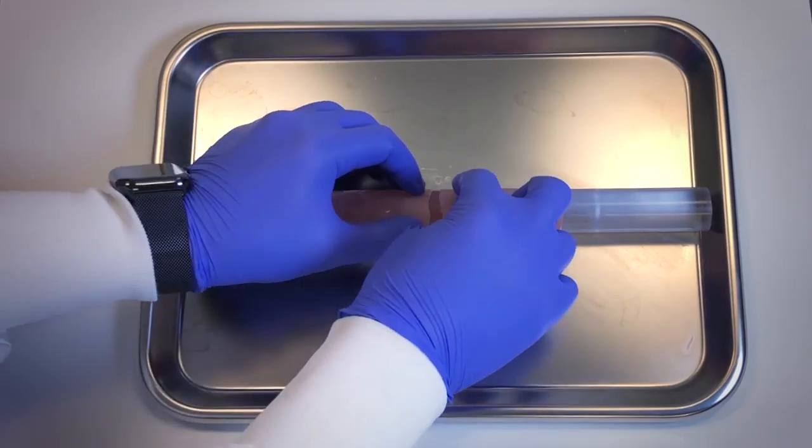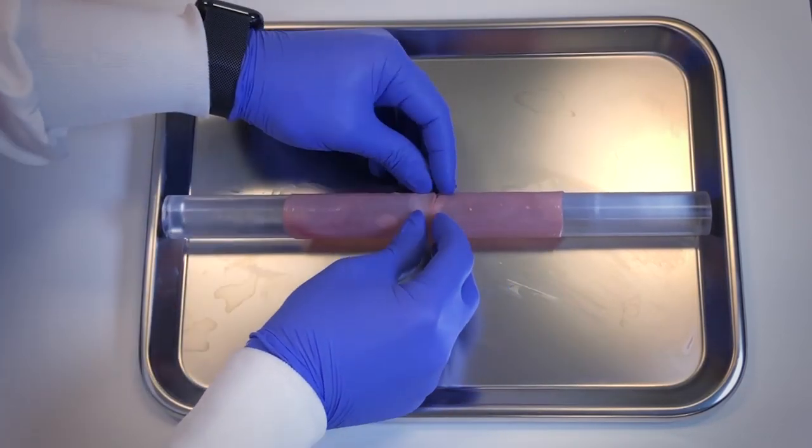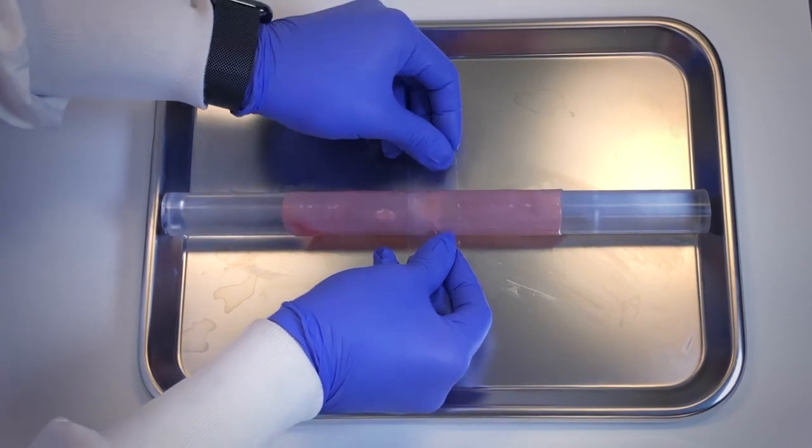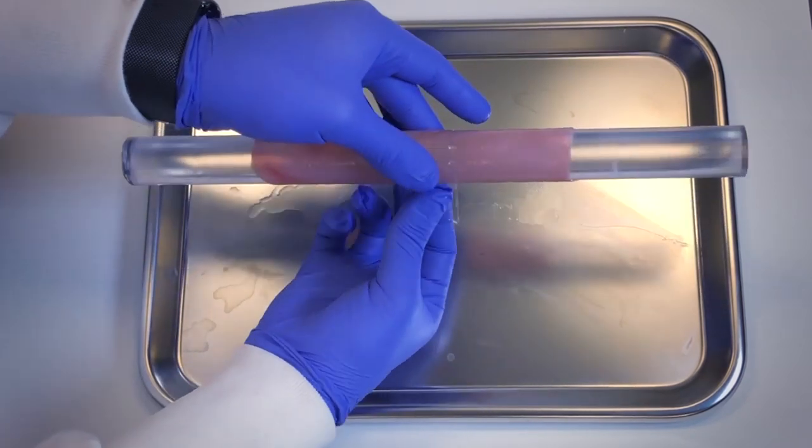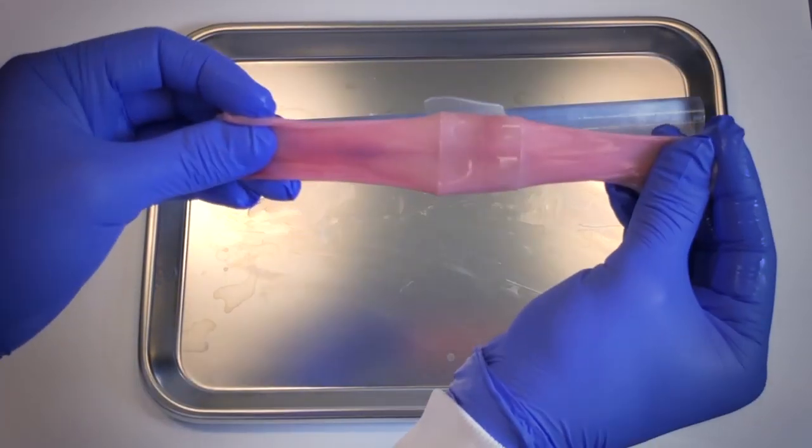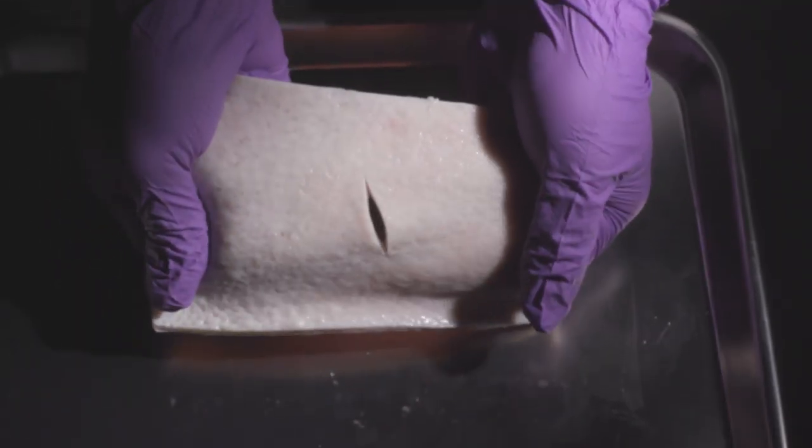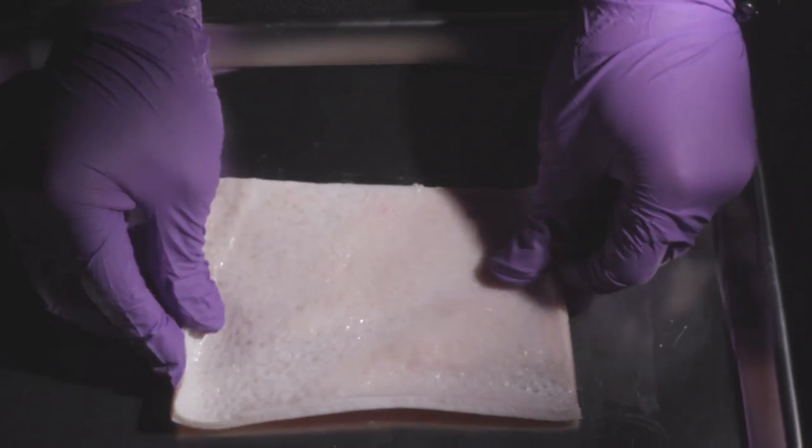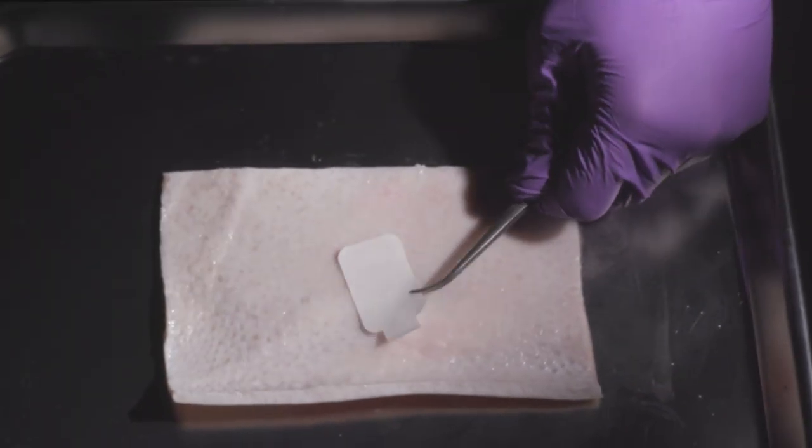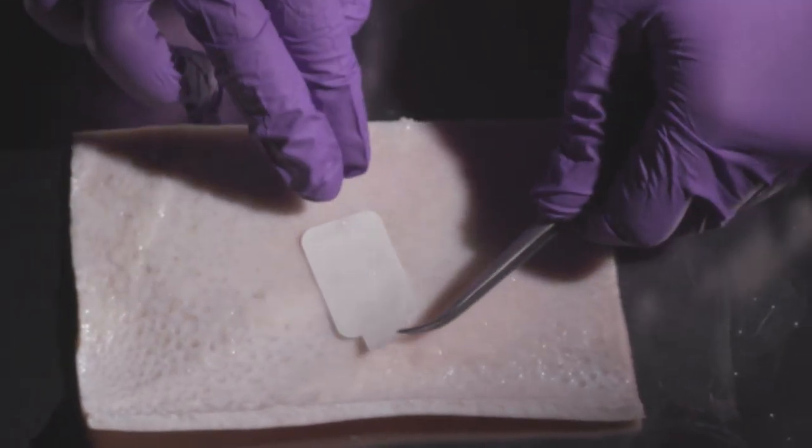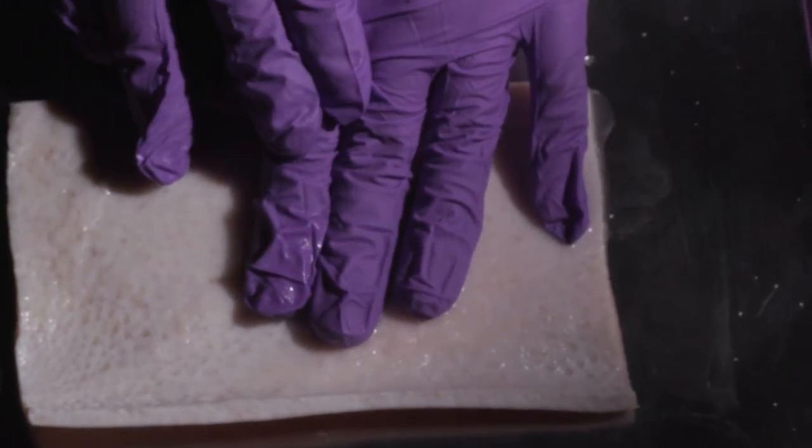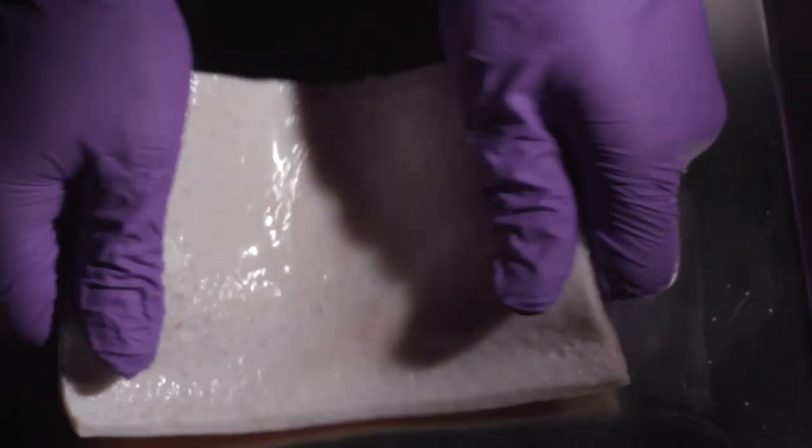There can be many benefits to patients. On one hand, this new bioadhesive tape can prevent the leakage of blood and body fluid from the wound site. On the other hand, in many applications, we may directly use this bioadhesive tape to replace sutures to fix tissues and organs together.